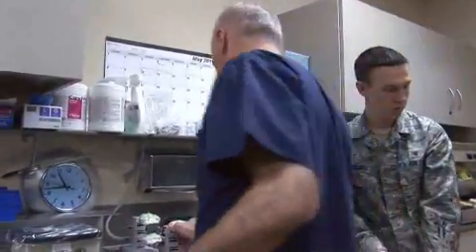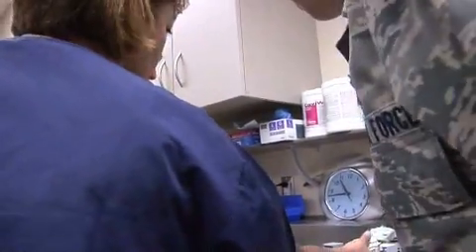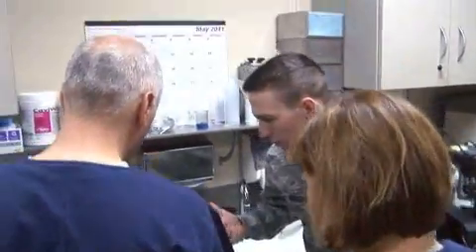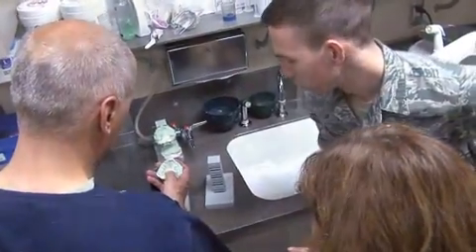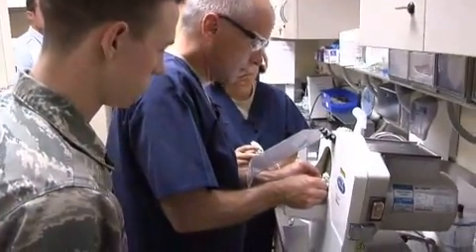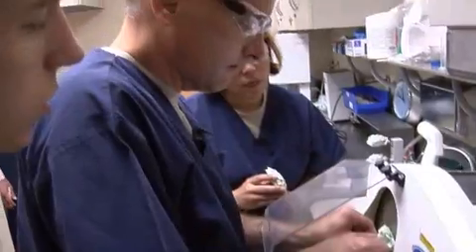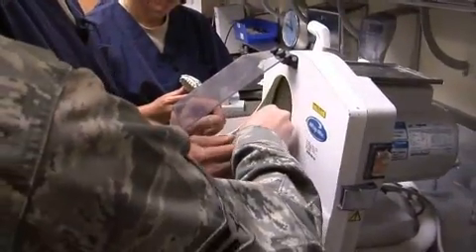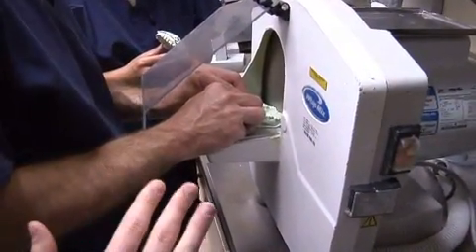Go ahead and remove your pressure. You can just grab the stone and pull it out. And there we go — didn't come out too bad. A little bubbles as expected. I've never poured up an impression before, and the stone set up too fast. There isn't really anything you can do — that's fine. Whenever it's like this, I just push it right there and get all that off. If you wanna clean up the sides a little bit, you can just take it.